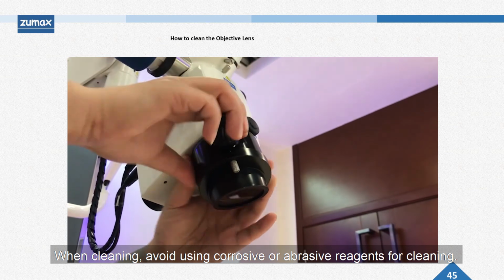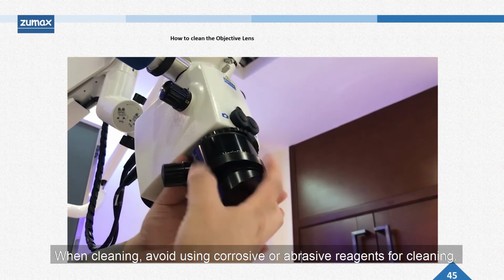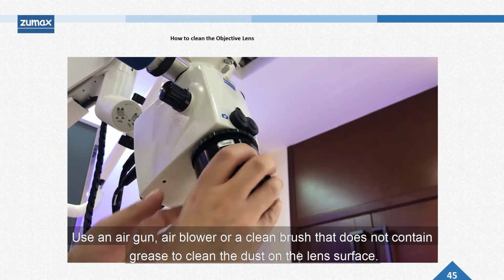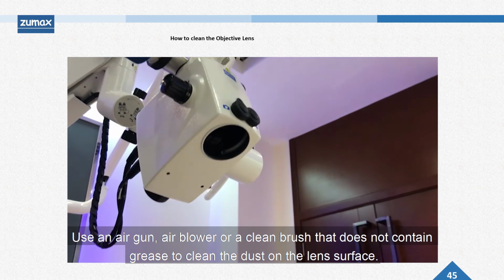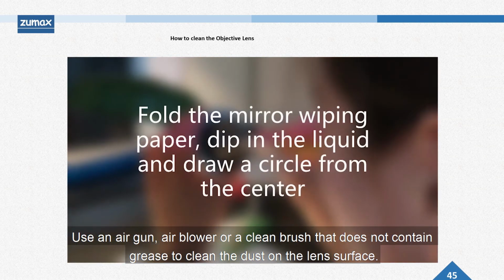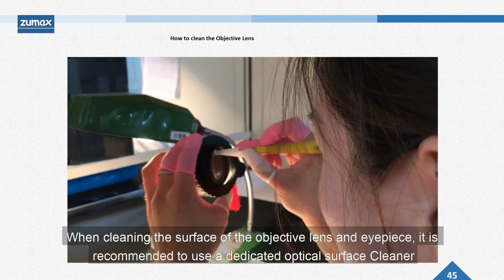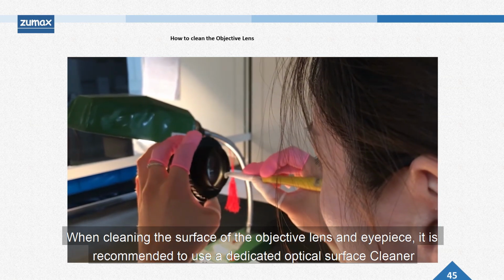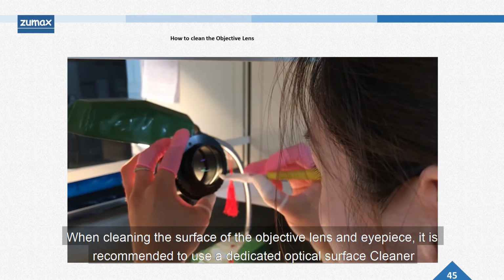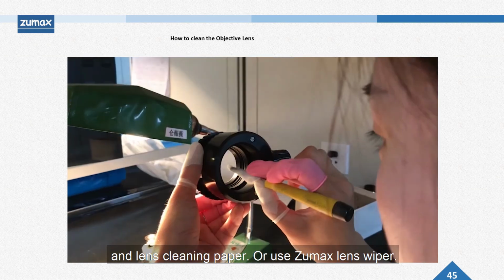When cleaning, avoid using corrosive or abrasive reagents. Use an air gun, air blower, or a cleaning brush that does not contain grease to clean the dust on the lens surface. When cleaning the surface of the objective lens and eyepieces, it's recommended to use a dedicated optical surface cleaner and lens cleaning paper, or use a Zumax lens wiper.